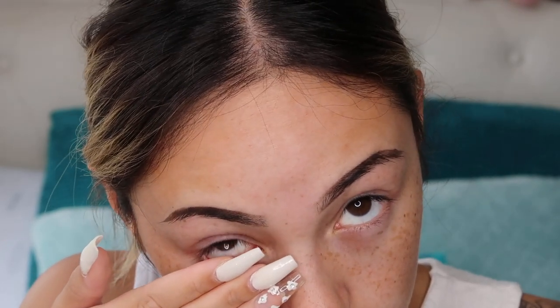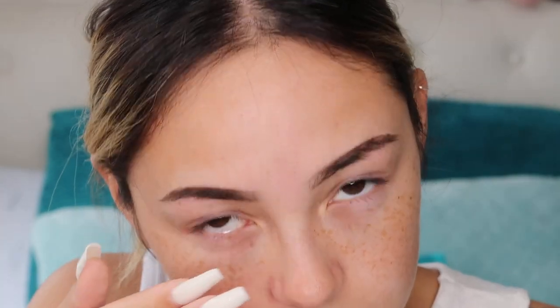It's out! And that is the trick. Let me put it back in because I can't actually see right now. Also, another way when you do have individual lashes on — just literally pull this down and put it in. There we are, that is the other way to put it in.